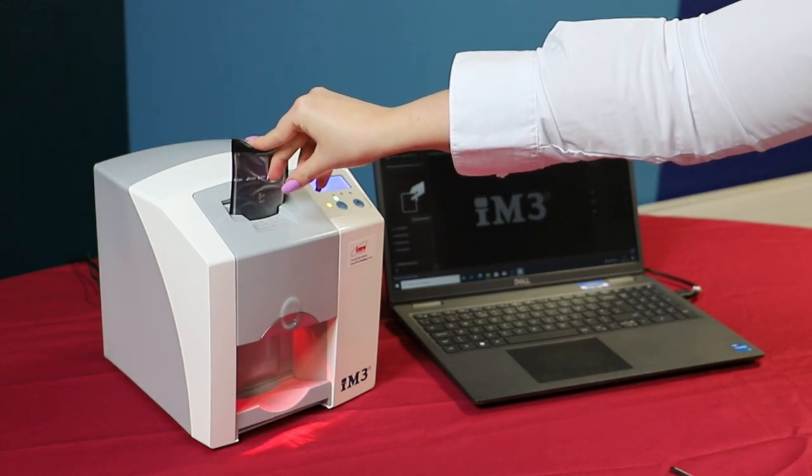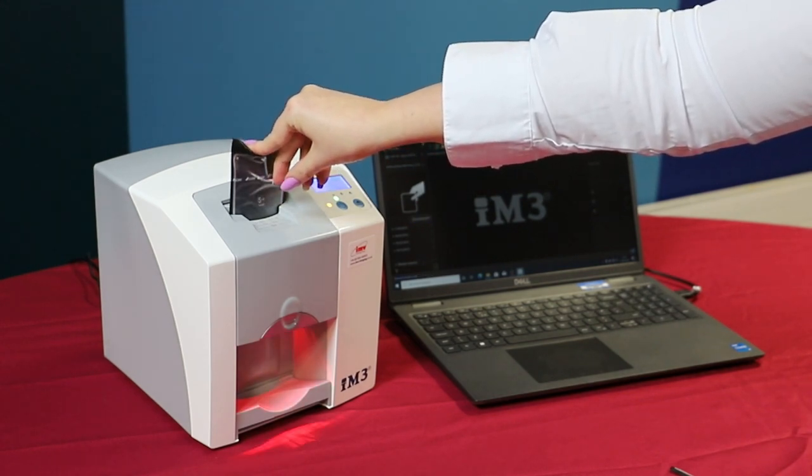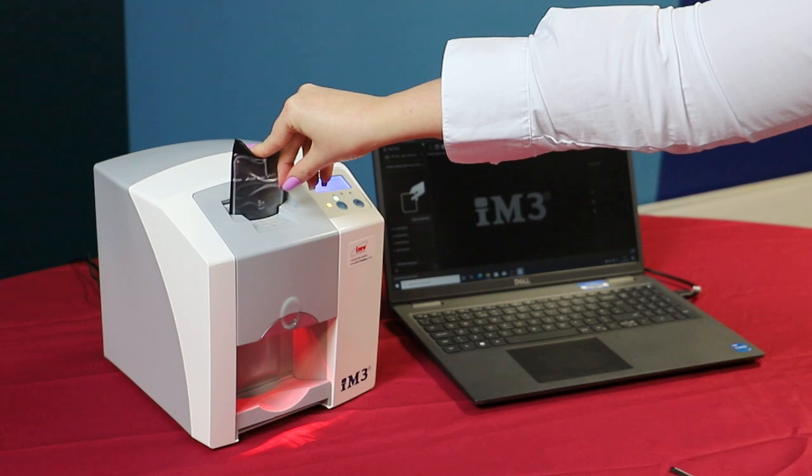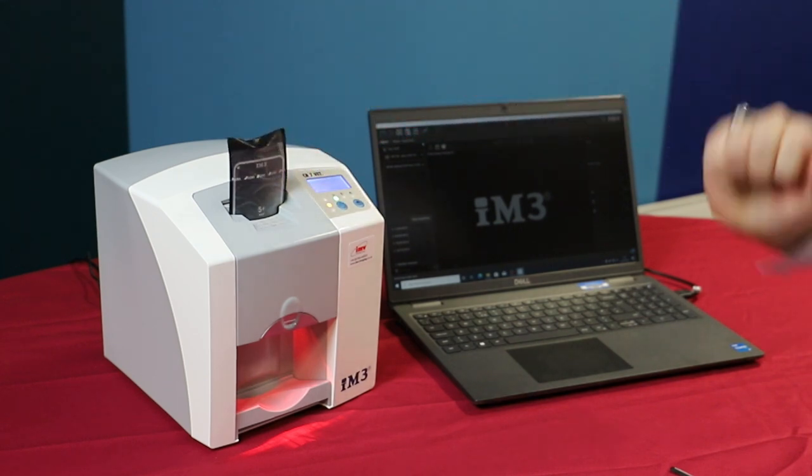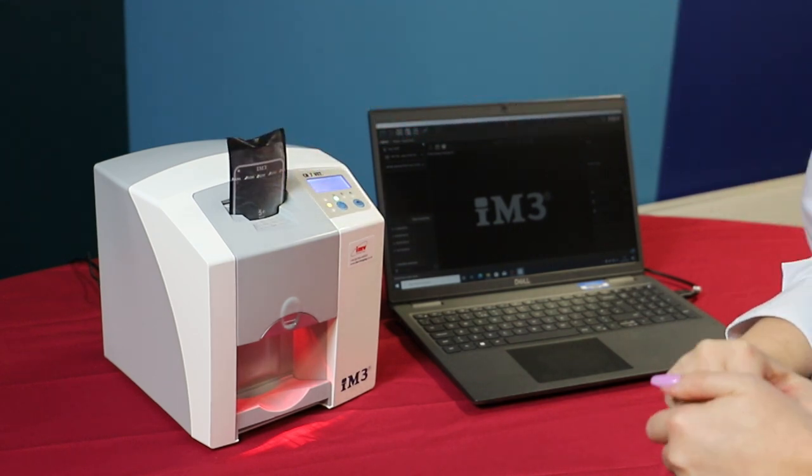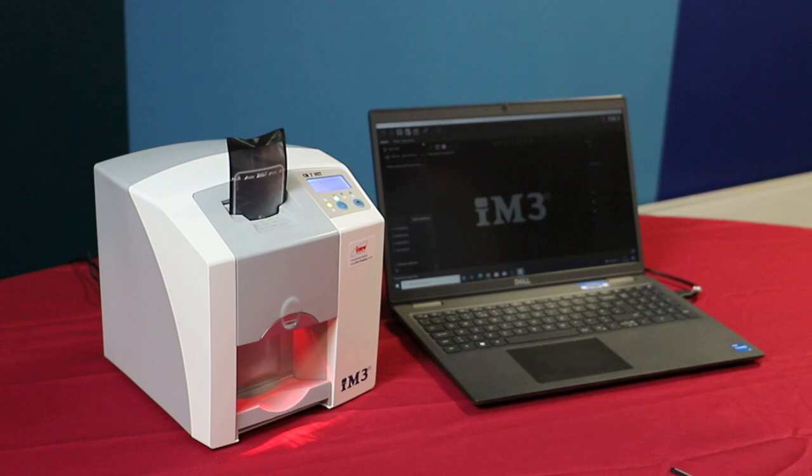A red light will be shown indicating that the CR7 is ready to accept the plate. Be aware that the envelope should not be going down with the plate when processing.